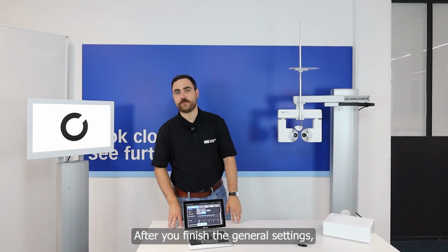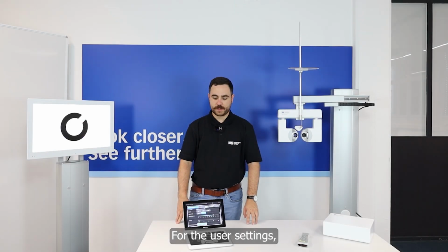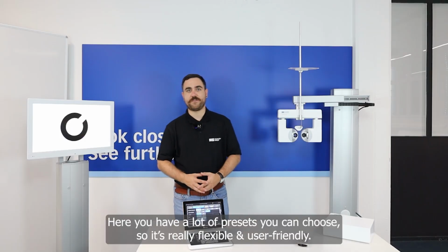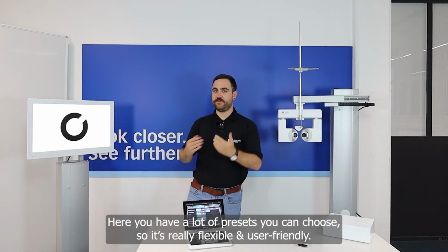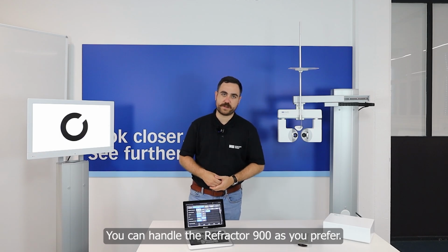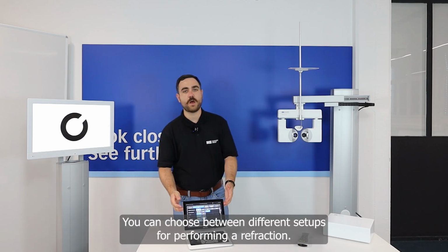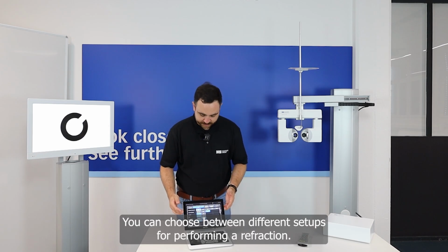After you have made your general settings, you can do your user settings. For the user settings, let's go to the user, and here you have a lot of presettings you can choose, so that it will be really flexible and user-friendly, and you can handle the refractor as you prefer it. So let's start with refraction sequences. You can choose between all the different setups that are possible for doing a refraction.